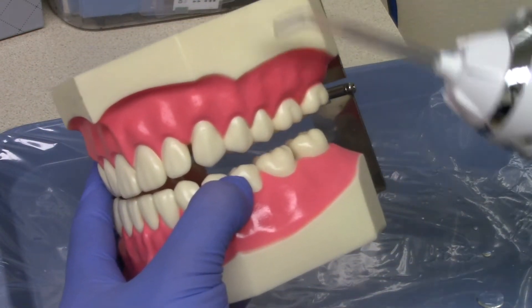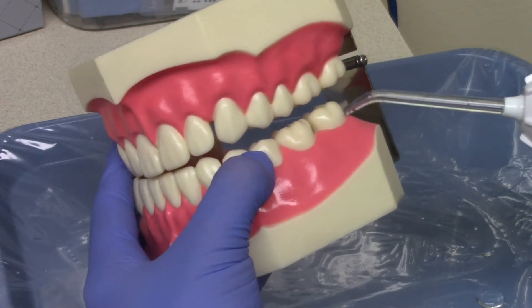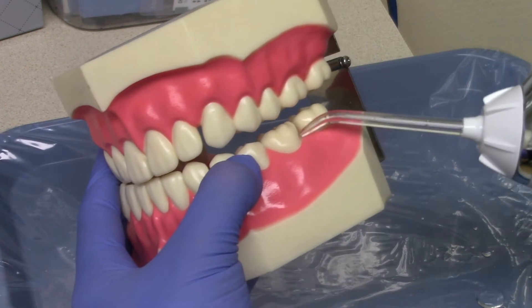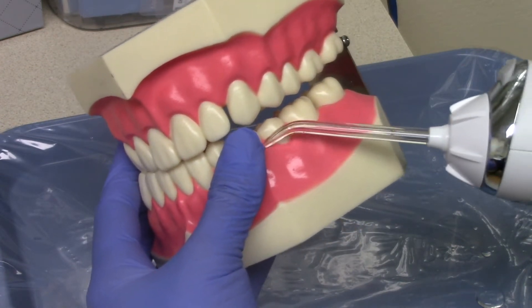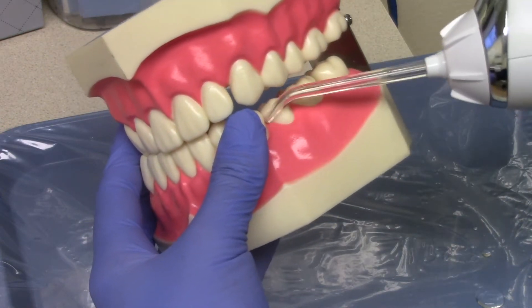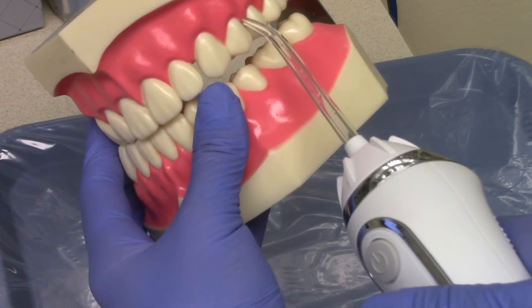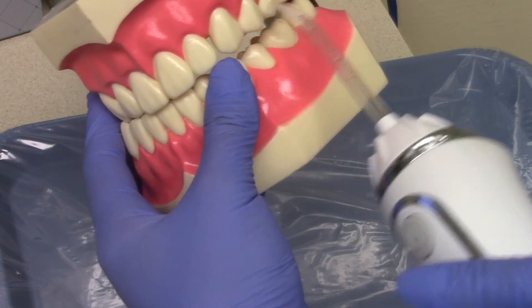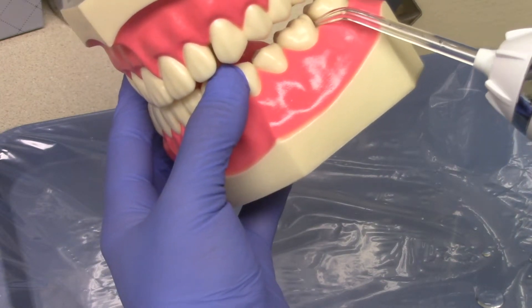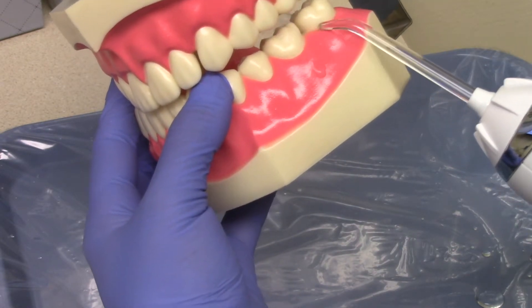You really want to be focusing on the sulcus of the gums. When you're using the water flosser, you're tracing over each tooth about five times, really angling the water pick tip down into the sulcus so that it splashes out. When you're working on the top teeth, angle towards the top — same as when you're brushing. Angle towards the bottom when working on the lower teeth as well. You can see how much is blasted out from in between the teeth as you trace along.